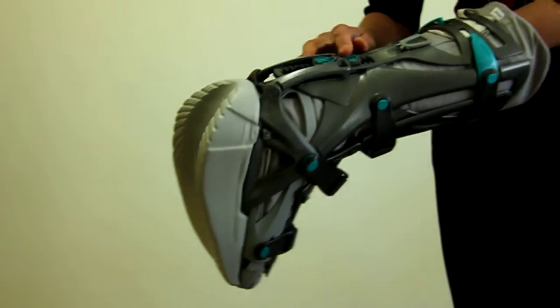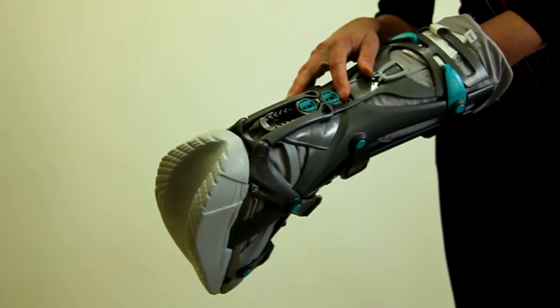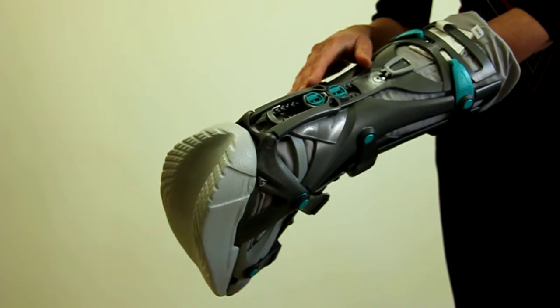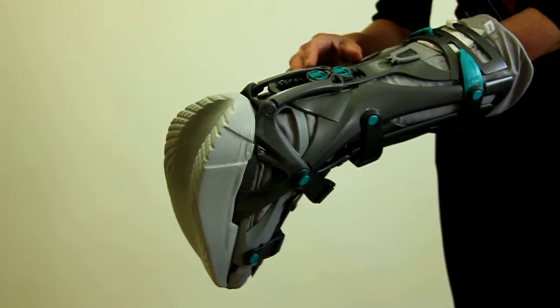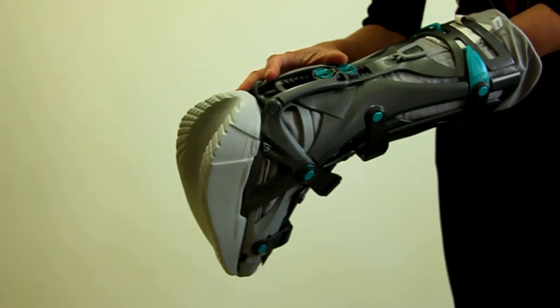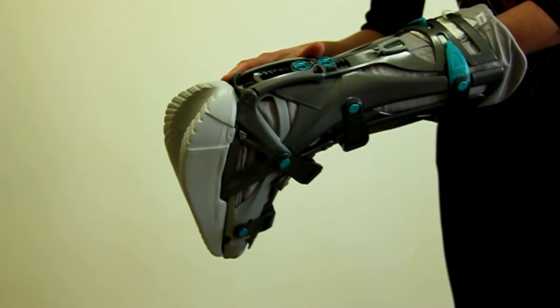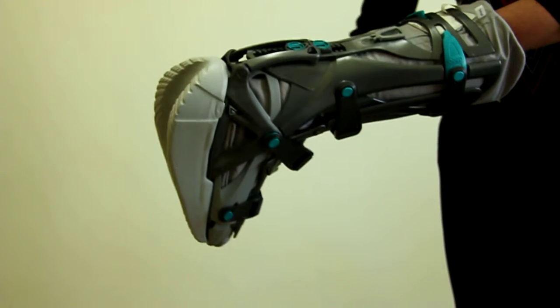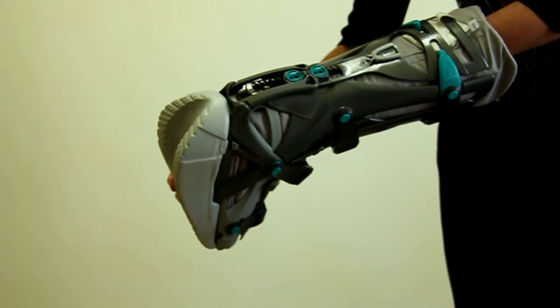It's very good with cost savings because it has the adjustable mechanism at the back where you can change the angles from a 30 degree plantar flexed angle down to a neutral angle, so it gives a huge cost saving to patients in terms of their post-operative or post-injury rehabilitation.